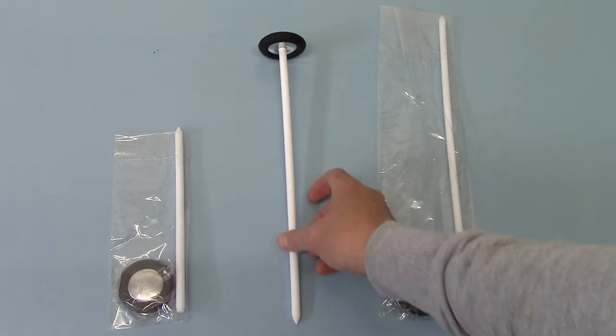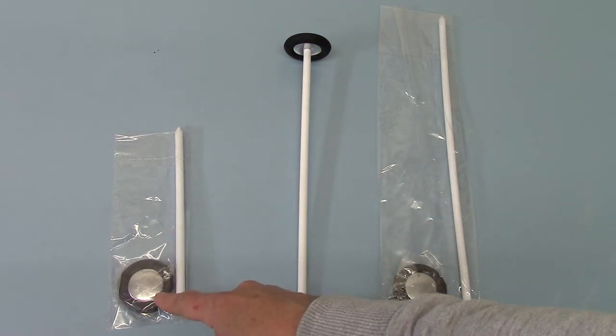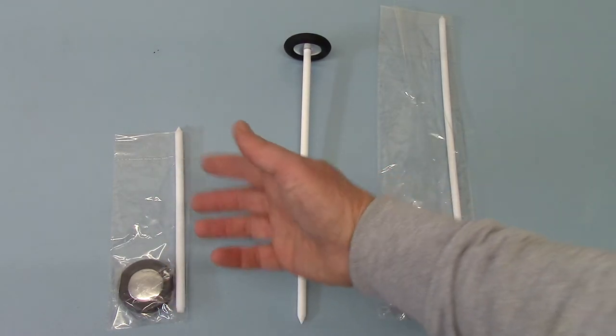And the options you've got here are the standard one foot, 30 to 32 centimeter handle. Short, compact, 21, might be more appropriate.